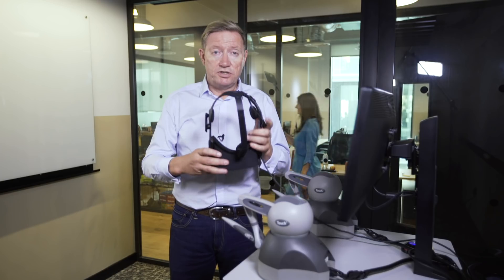I'm going to show you some of the key benefits of our pedicle screw insertion simulation, so join me in the virtual OR.